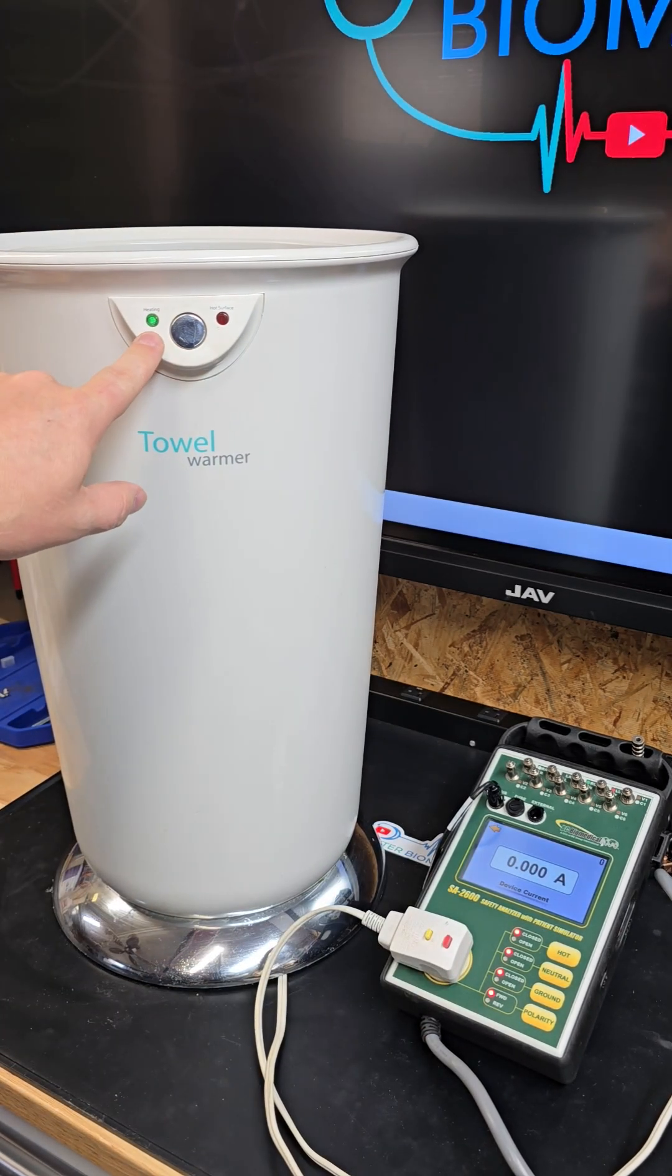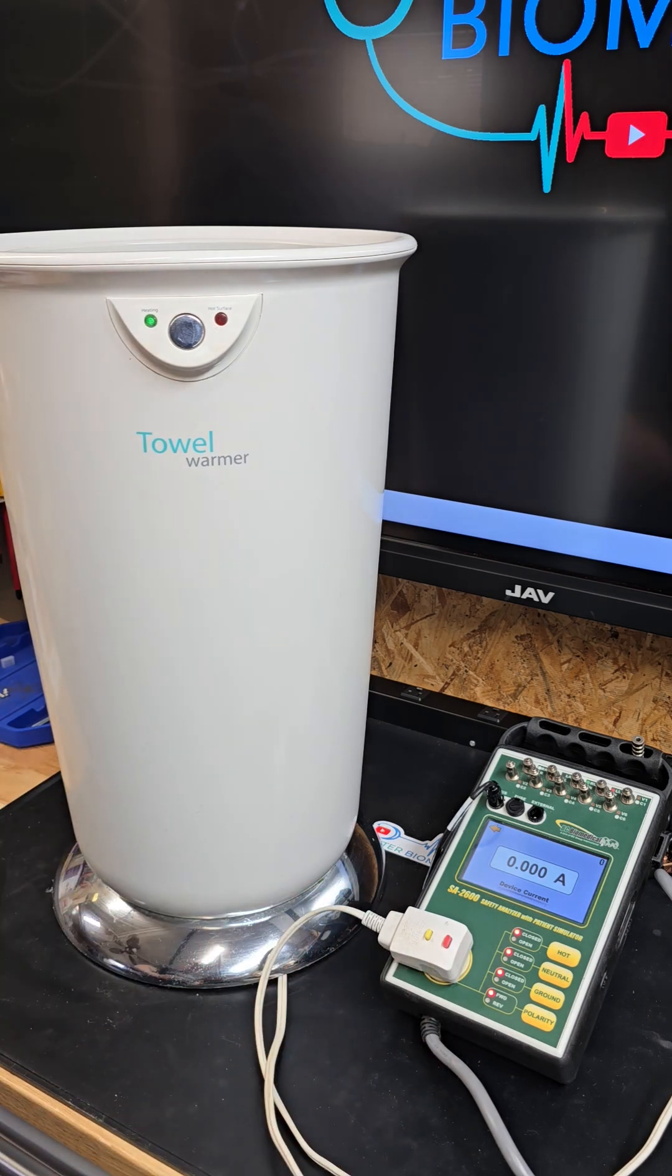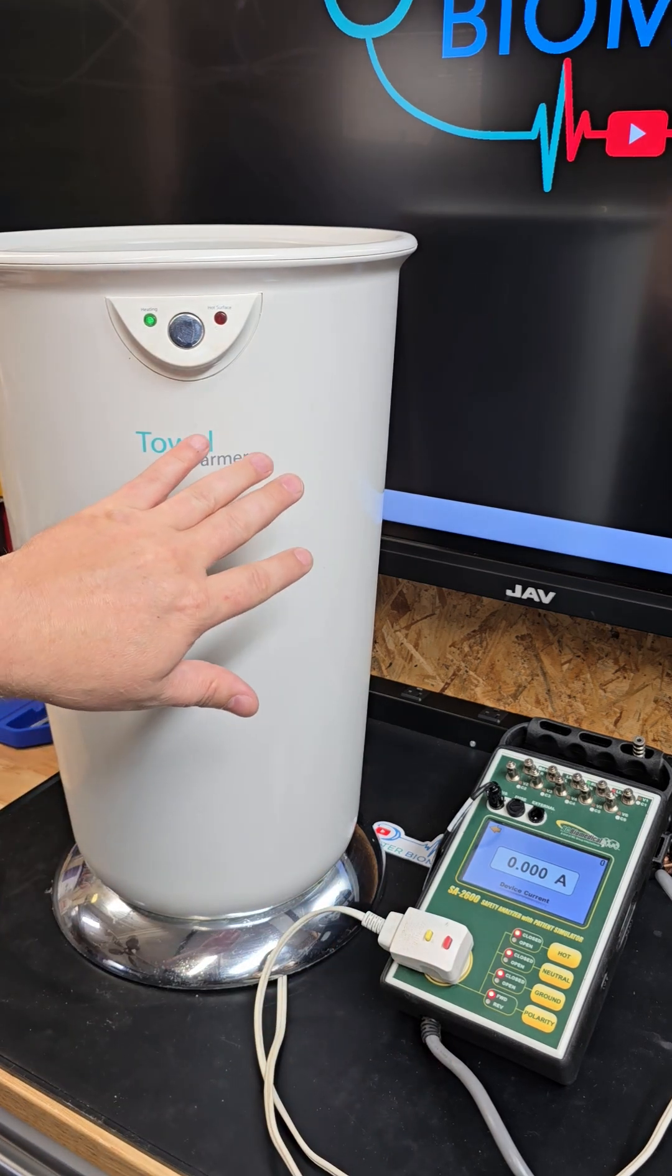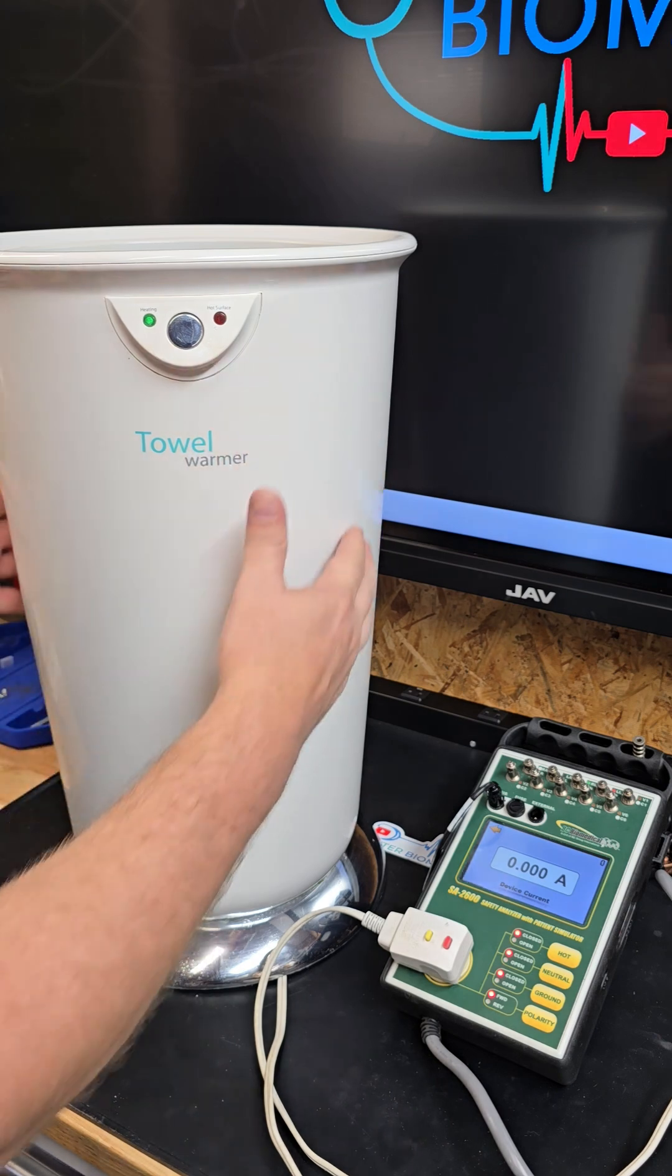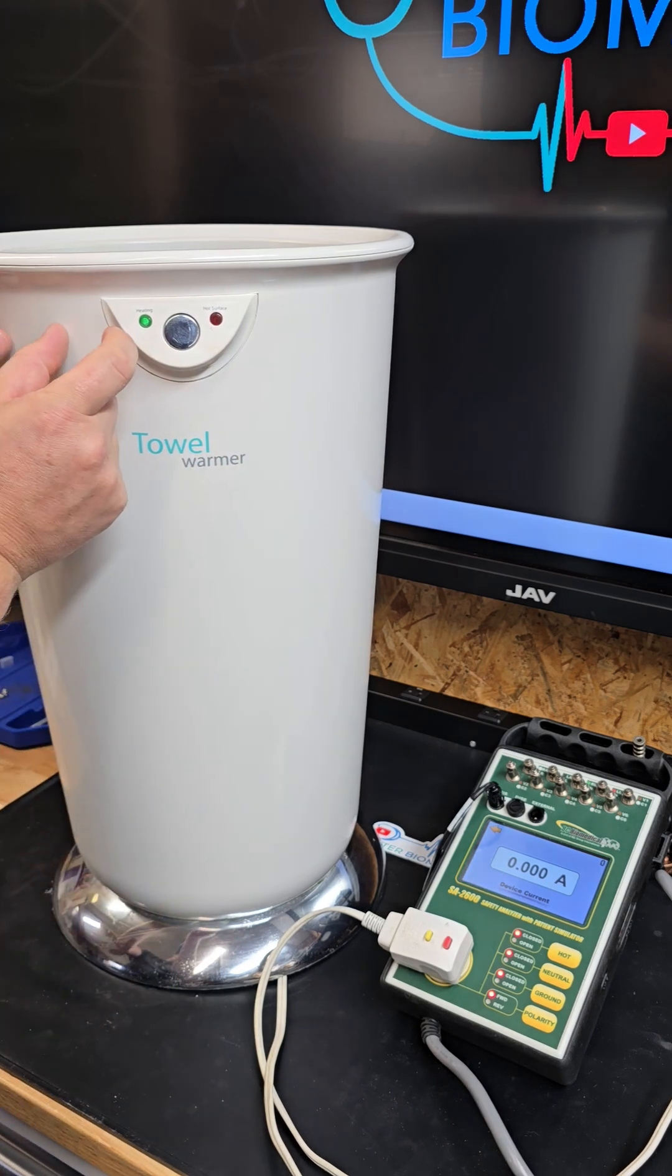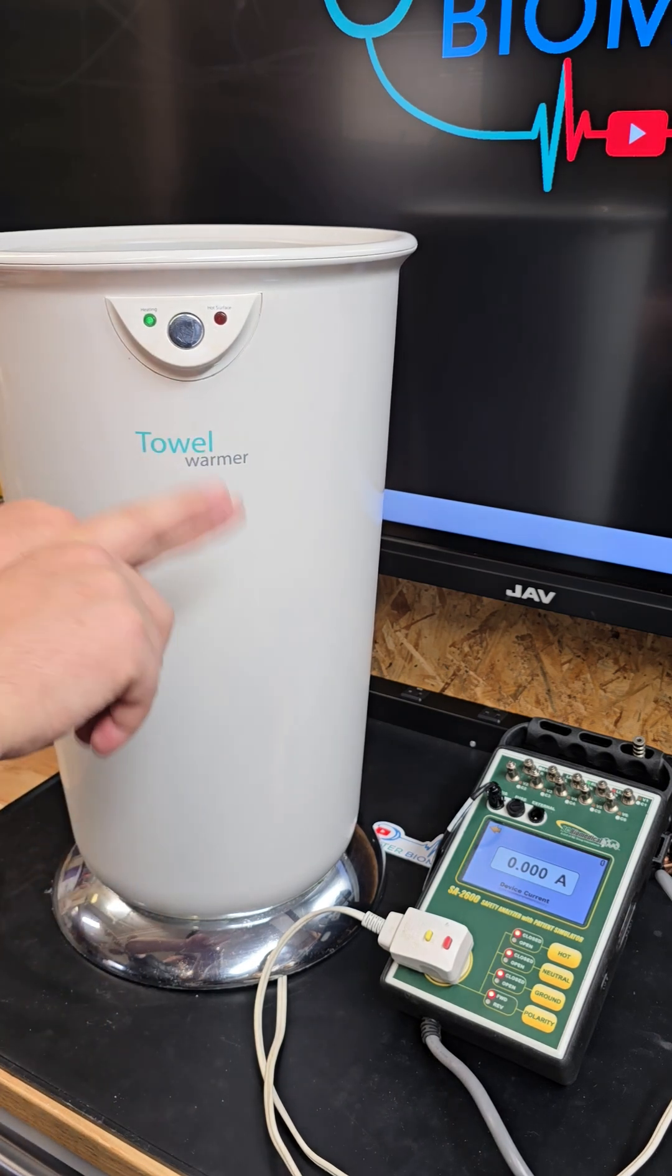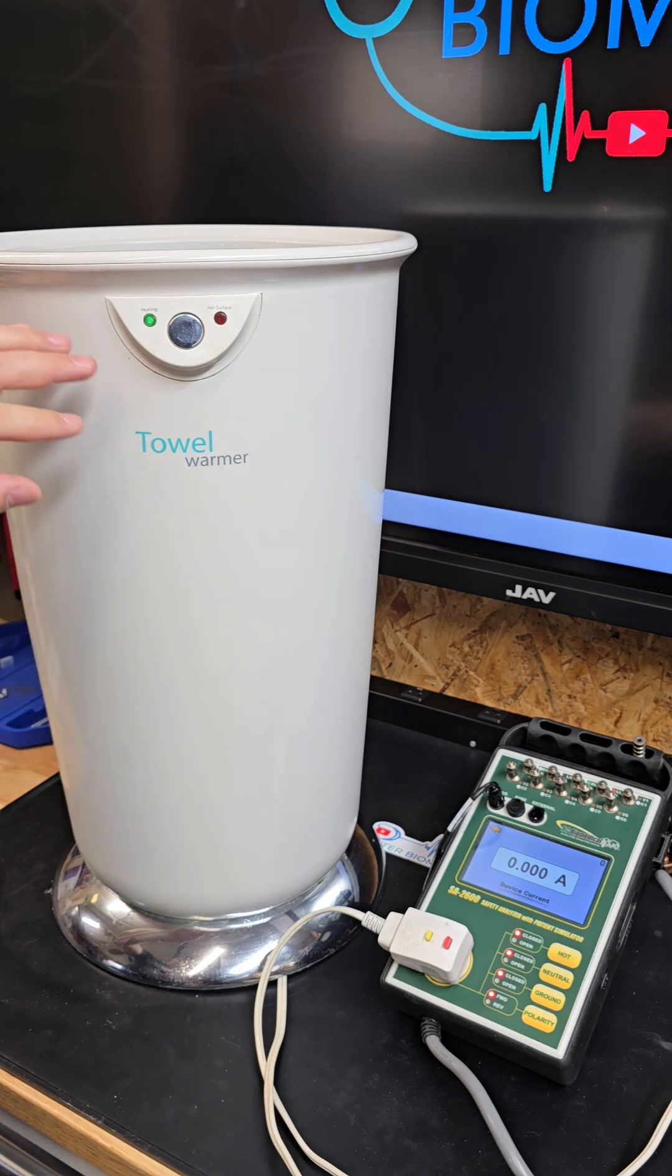It is definitely lit up and supposed to be heating. This particular device has a heating element and a thermal regulator, which is a bi-metallic strip that connects and disconnects at temperature. There's also a thermal fuse.